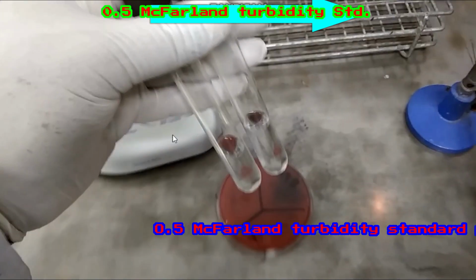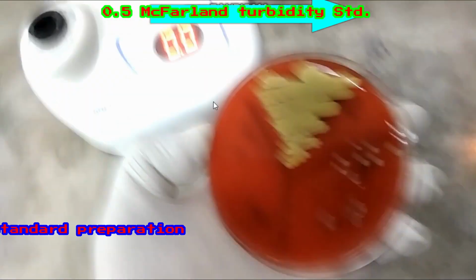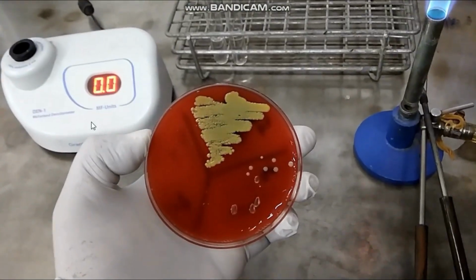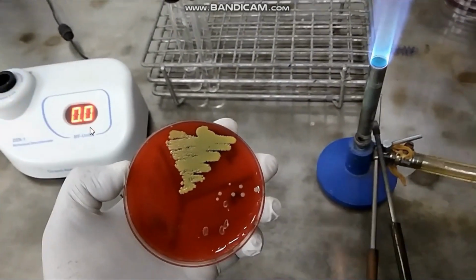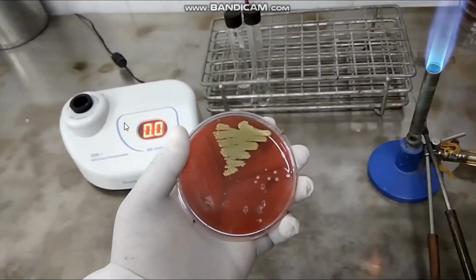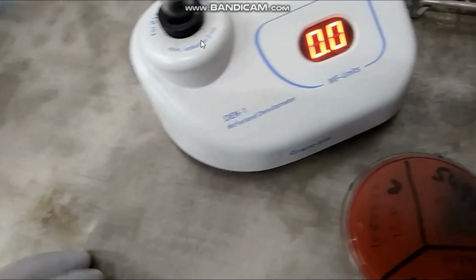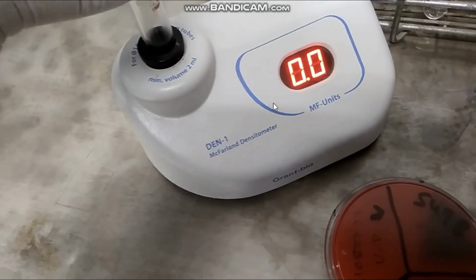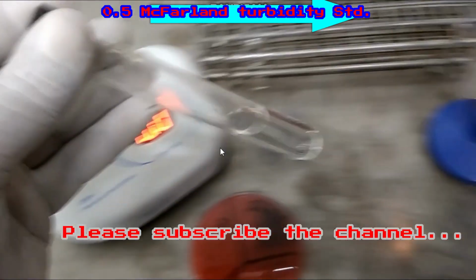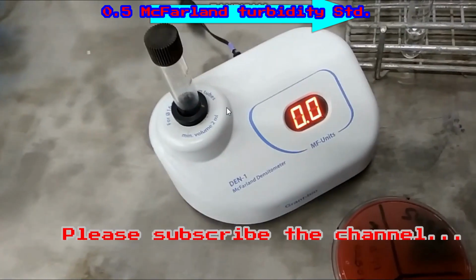Here we have two physiological saline tubes. At the beginning, the standard 0.0, here you can see, of the densitometer, blank setup, that is 0.0. Turbidity standard.